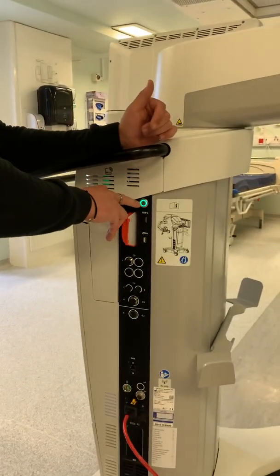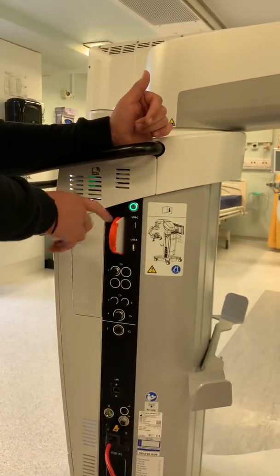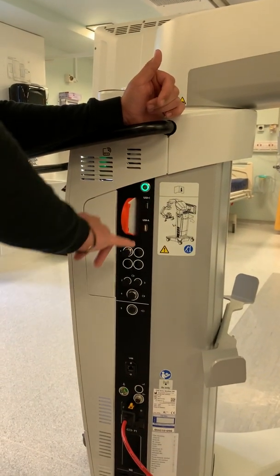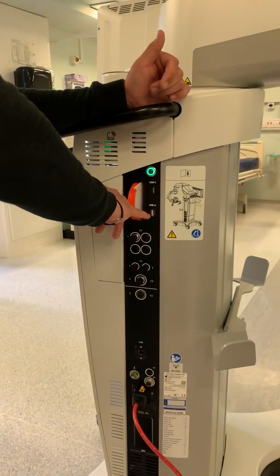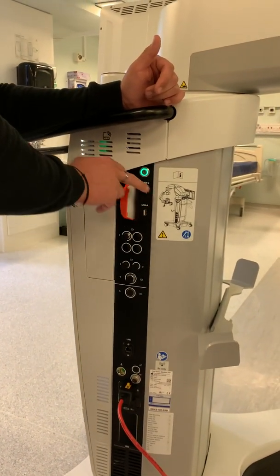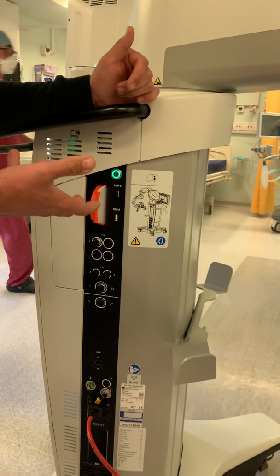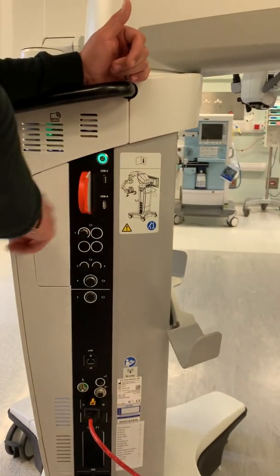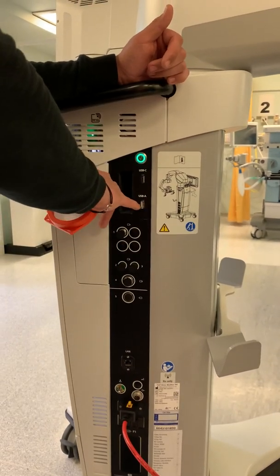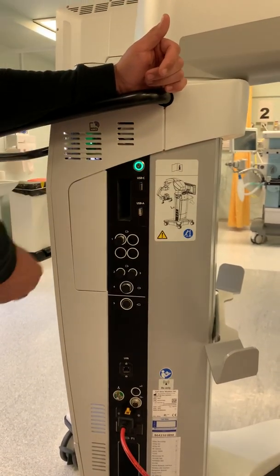This power button will be white. Press it once, it goes green and then the startup begins. At the back you have your USB-A key for data transfer and also USB-C for newer data keys. USB-A is here — if you have an external hard drive you can plug it in through the USB-A slot and keep it there.